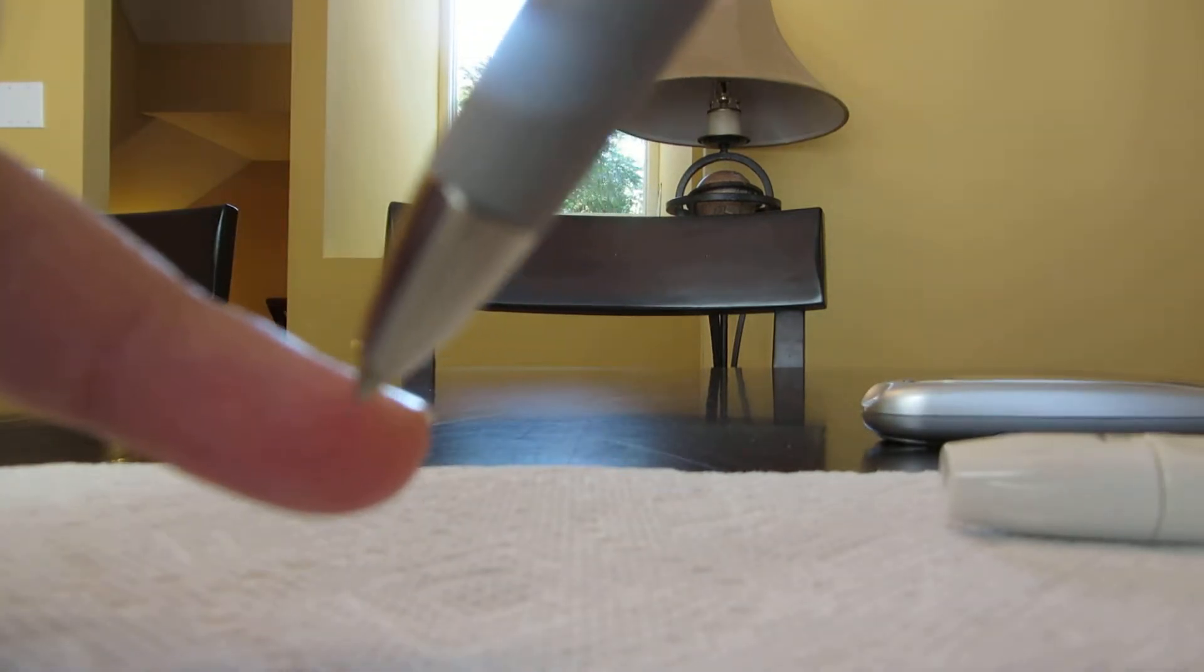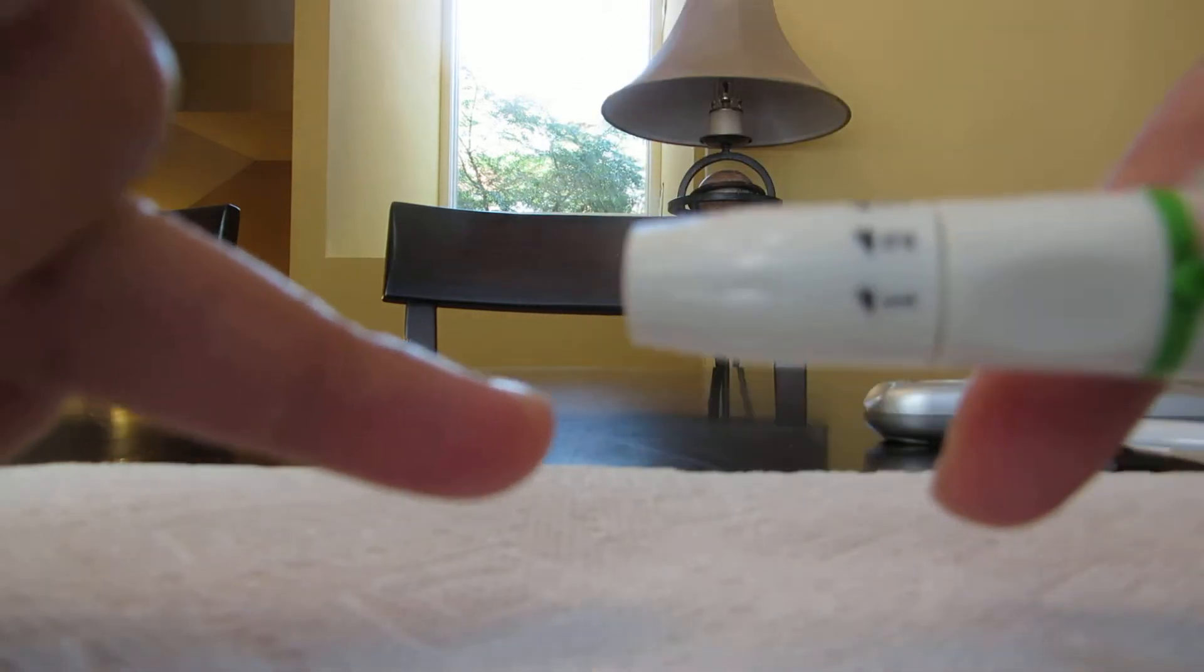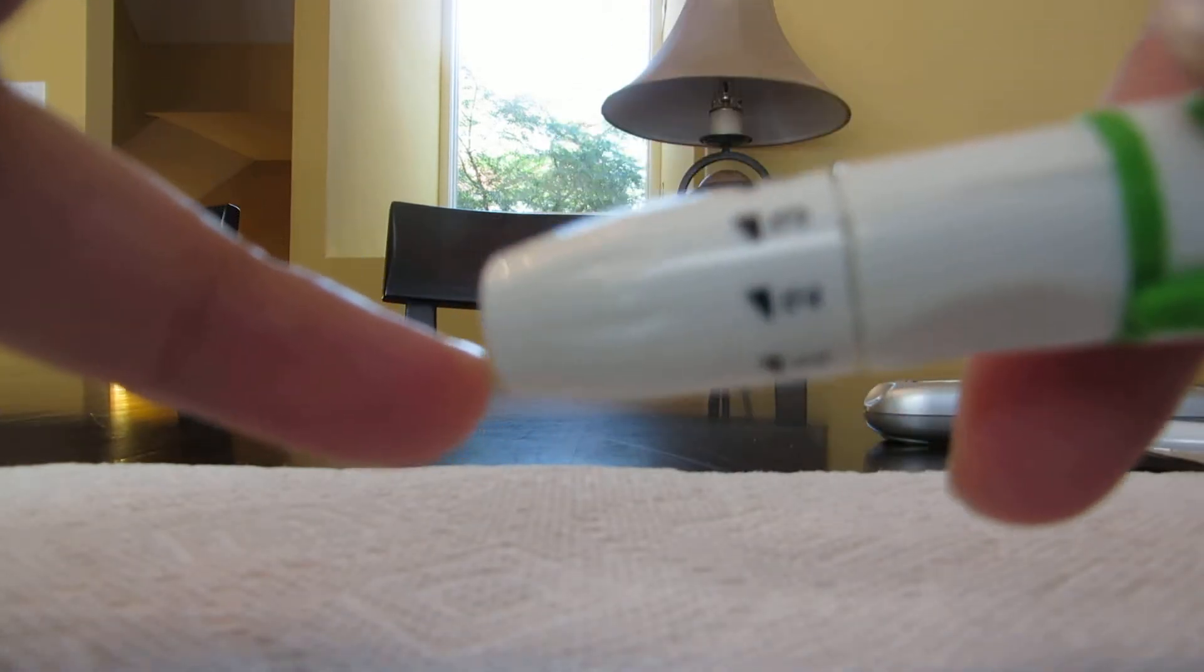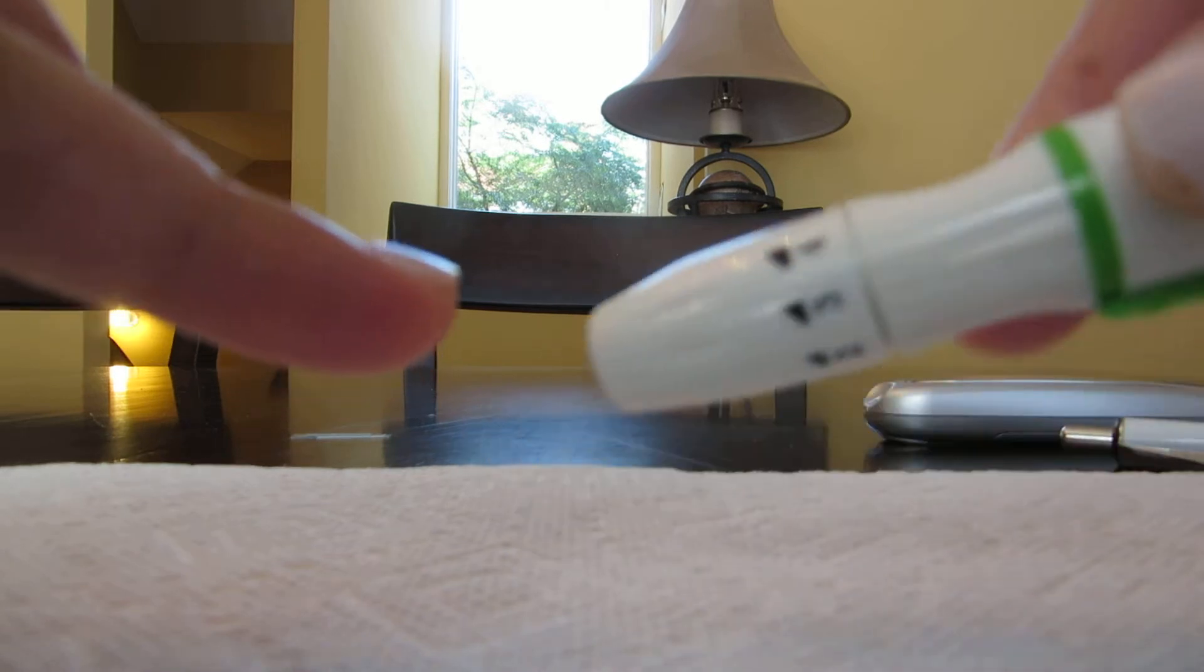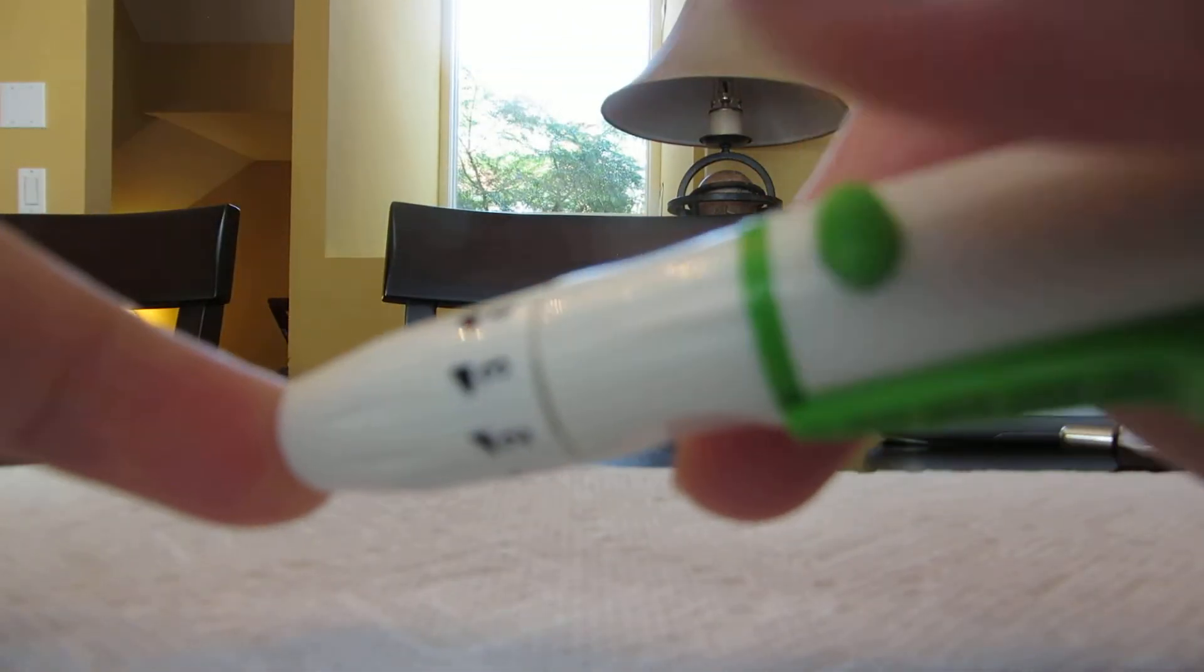Not really in the center of the finger, that's not ideal—just the sides. Take the lancet, choose a finger, go from the nail and then right to the side of it, not in the middle.